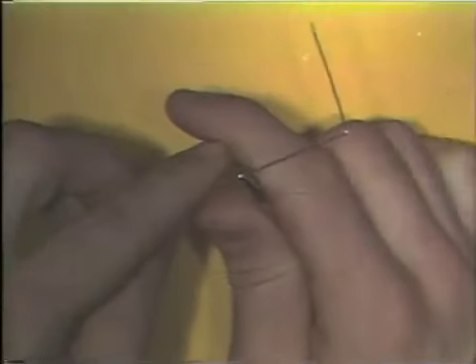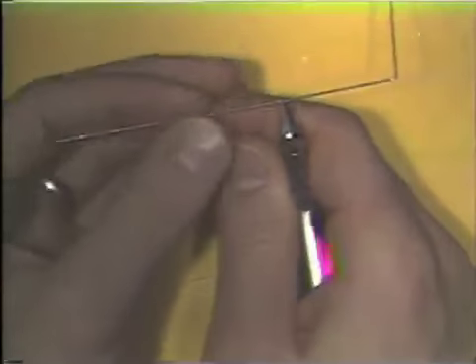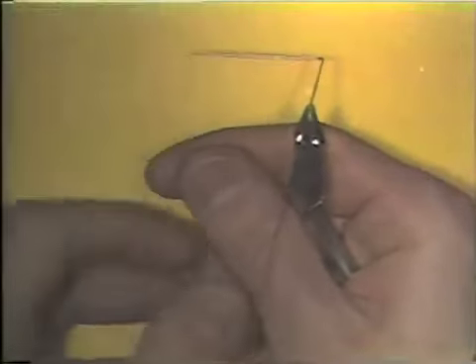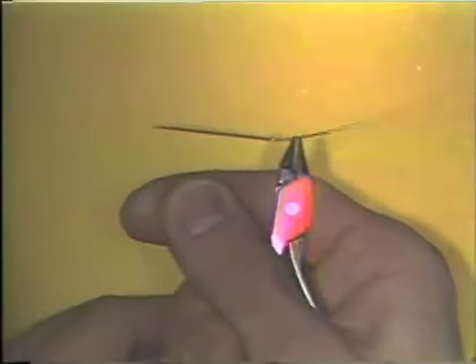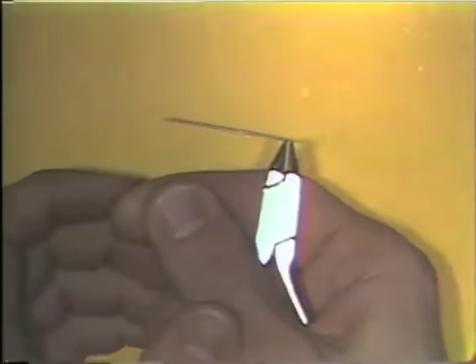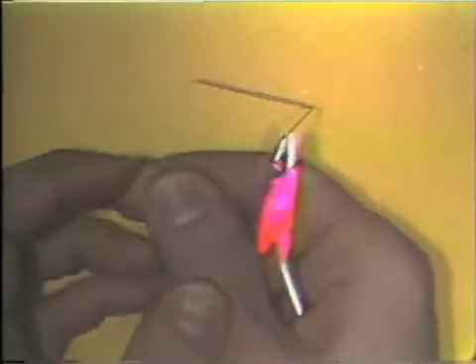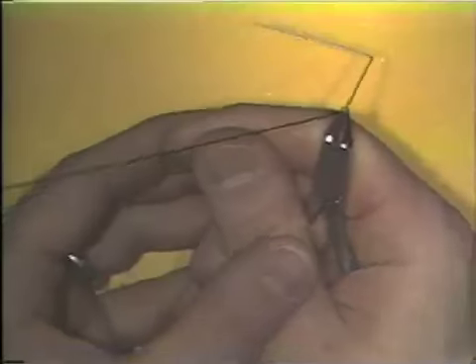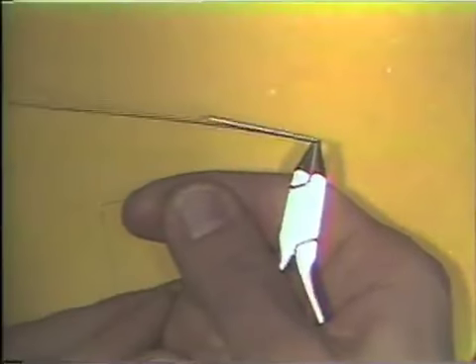The pliers are placed on the wire just to the side of the white mark that you made. It is important that the wire be at 90 degrees to the long axis of the beaks of the plier, and that the first leg of the wire that you've bent be at 90 degrees perpendicular to the flat beak of the plier. The bend is made 1/3 of the way, again, keeping in mind always the plane and space of the wire as you make the bend.